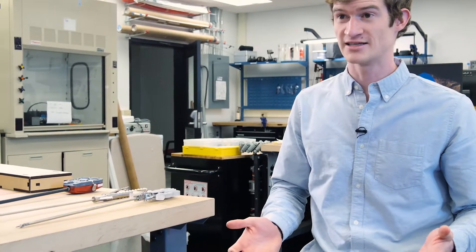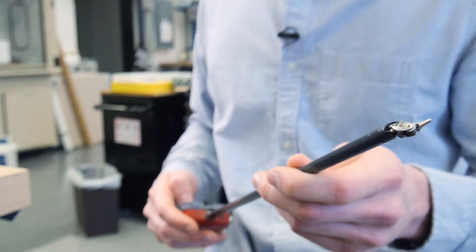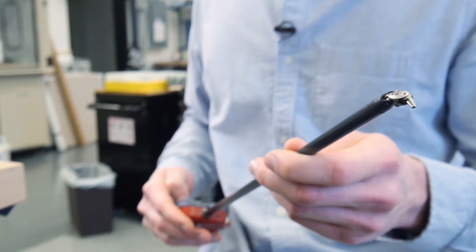One of the great things about robots is that they give you more control at the surgical site, so you can have tiny little wrists that are controlled by motors and computers, but this makes them really expensive.